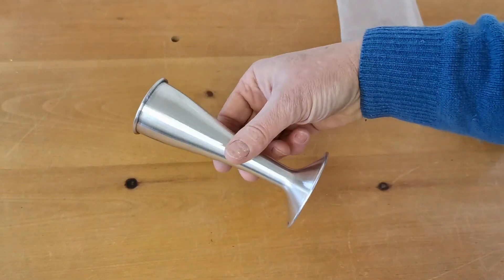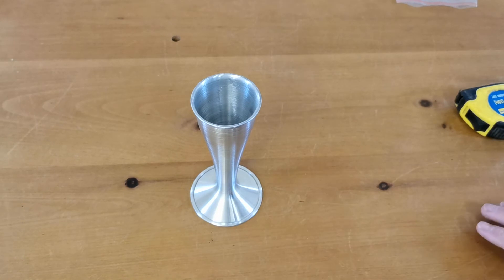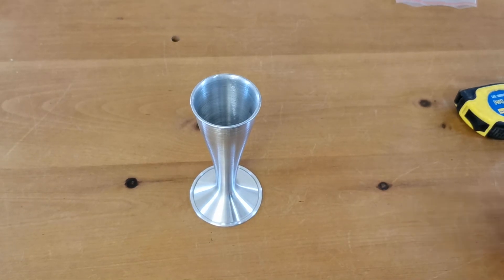A very good, robust, functional, and hopefully long-life unit for use in maternity units, GP surgeries, by midwives, paramedics, and A&E departments — anybody basically who's wanting to do direct fetal auscultation with a trumpet pinard design stethoscope. These are an ideal choice.